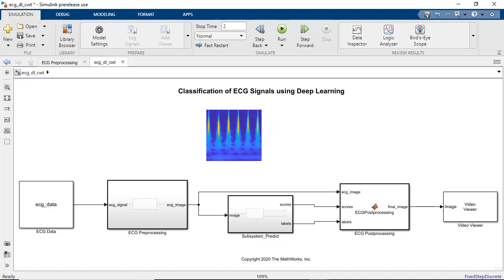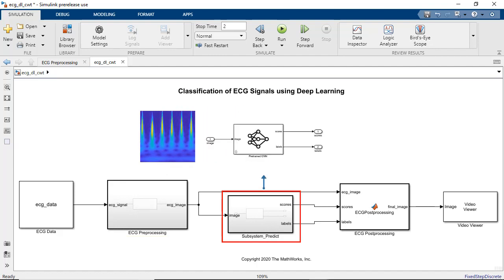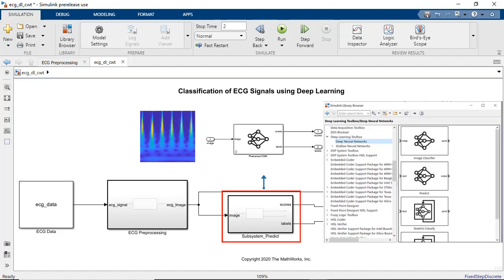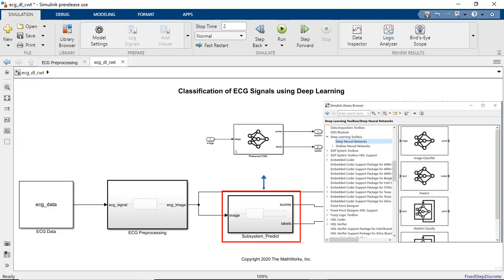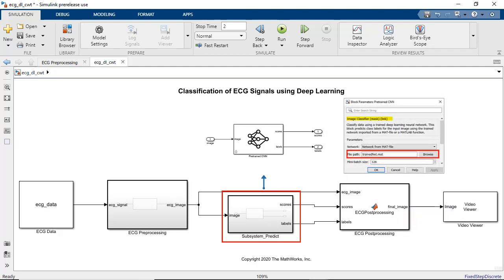These images are then passed as input to the pre-trained network to classify the ECG waveforms. To use deep learning networks in Simulink, we can use blocks from the deep learning library or the enhanced MATLAB function block. For this example, we use the image classifier block to represent the pre-trained SqueezeNet.